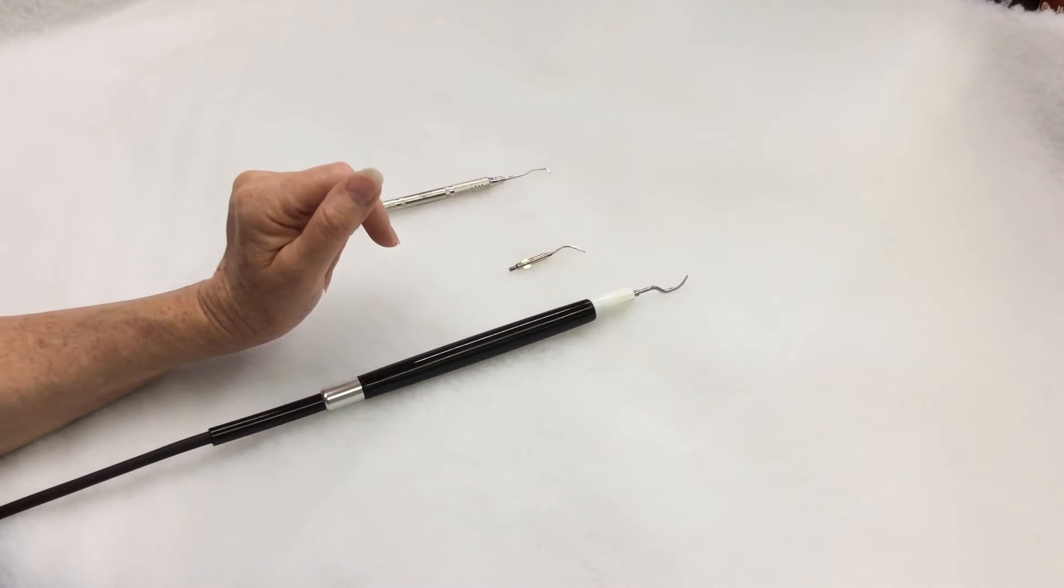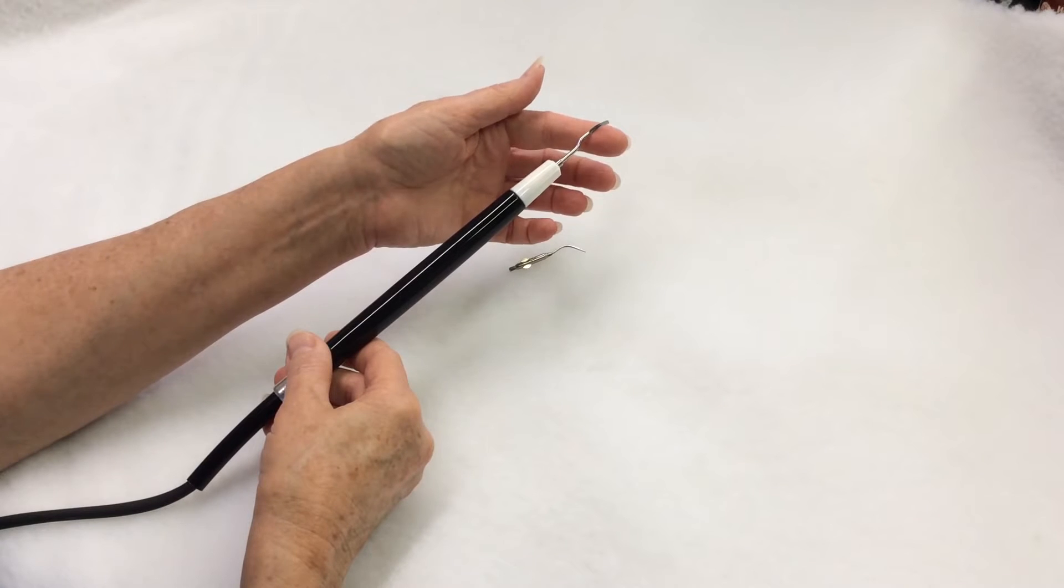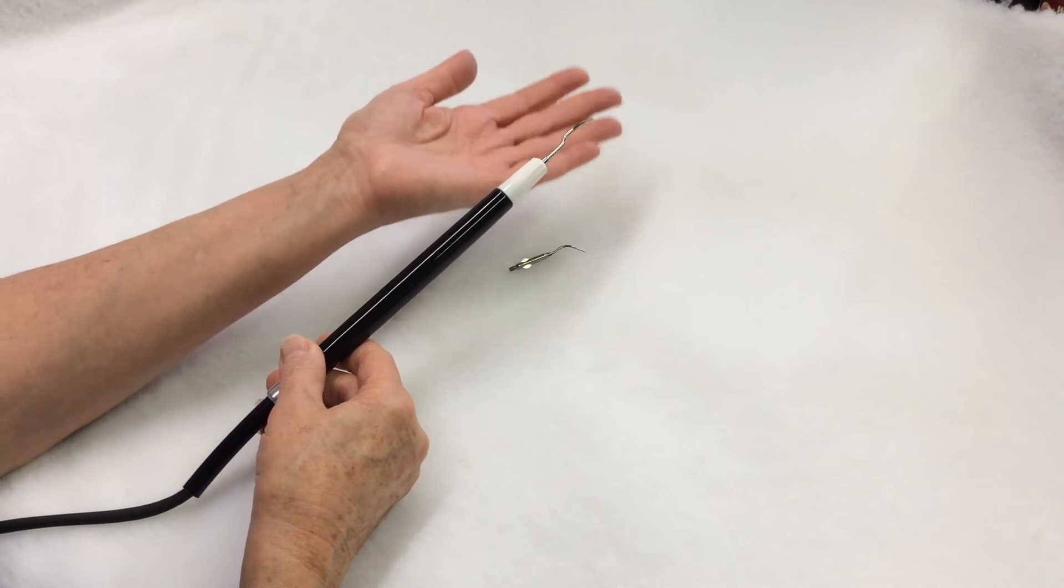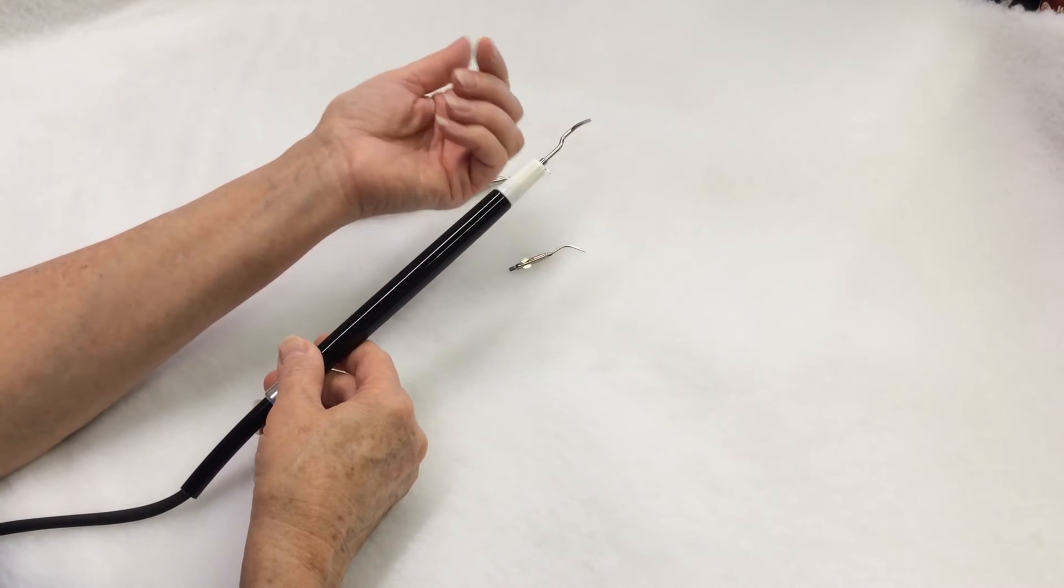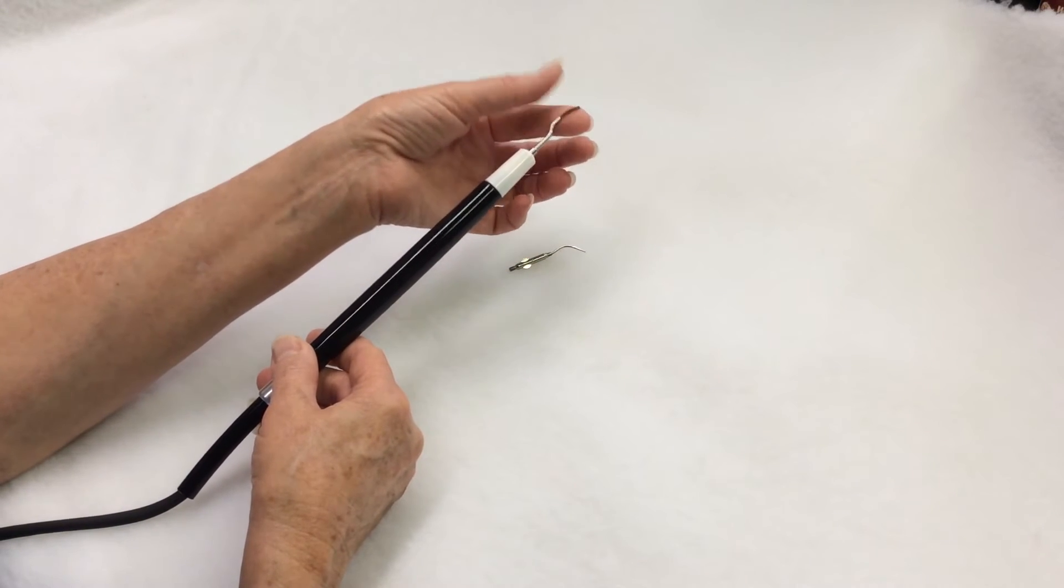So let's do a little experiment. Step on the foot switch and gently touch the tip. If it burns your fingers, take your foot off the foot switch and again touch the tip. You will see that it will be at room temperature.